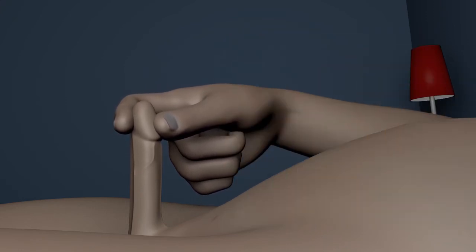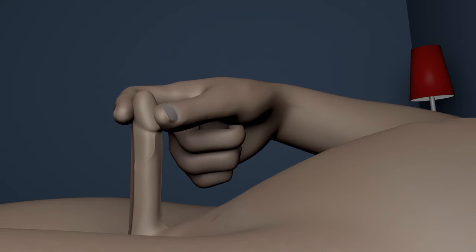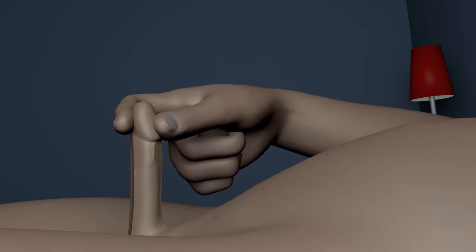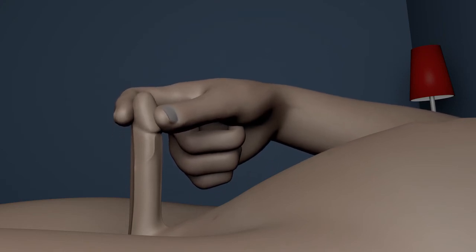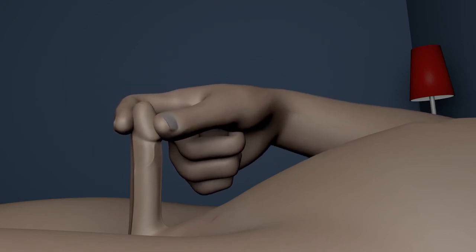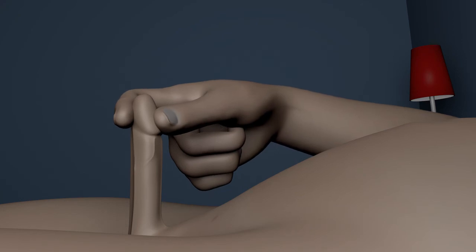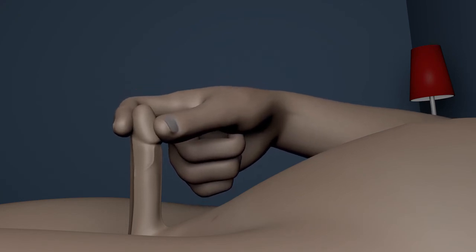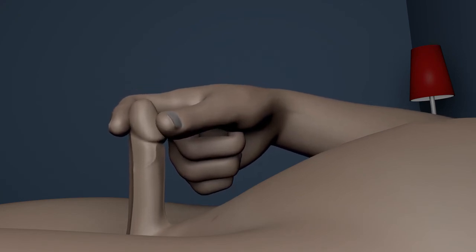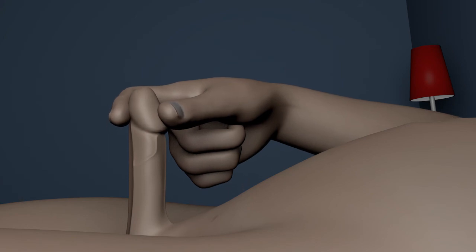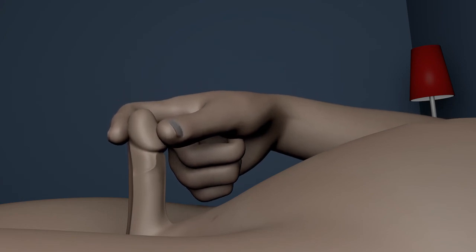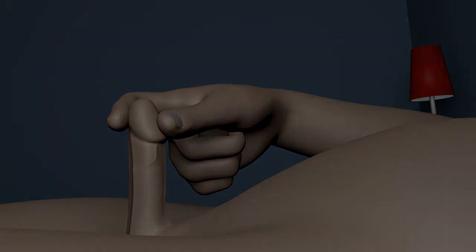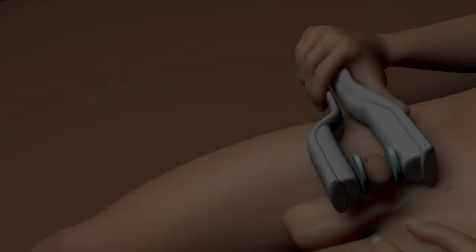Perform this squeeze, pull, and release exercise every two to three seconds for several minutes, eliciting the pullback reflex each time. After several minutes, you may feel a physiological event in which the penis may gradually fill with blood or even become full and rigid. Now you're ready for Viberect stimulation.